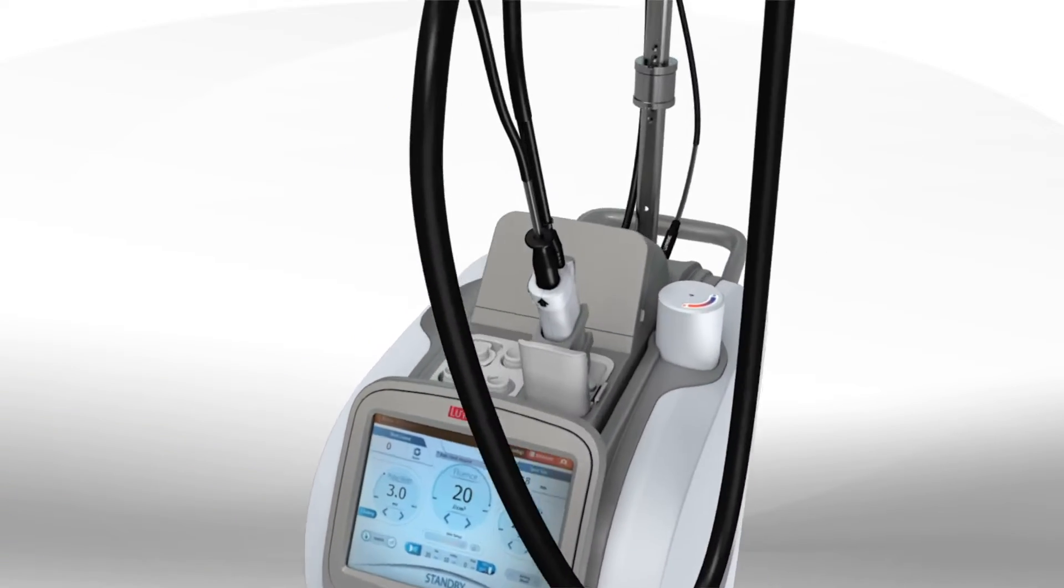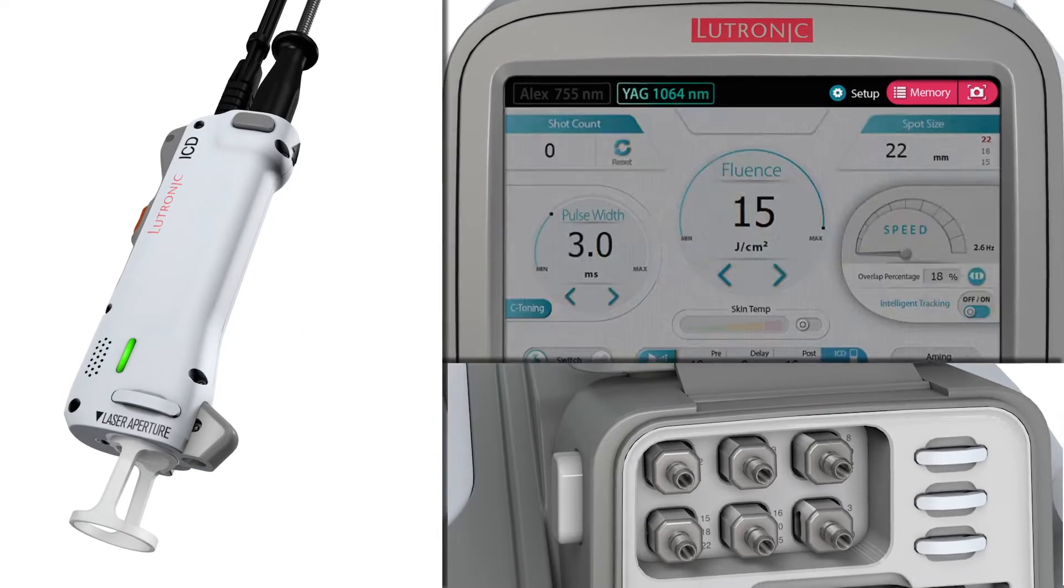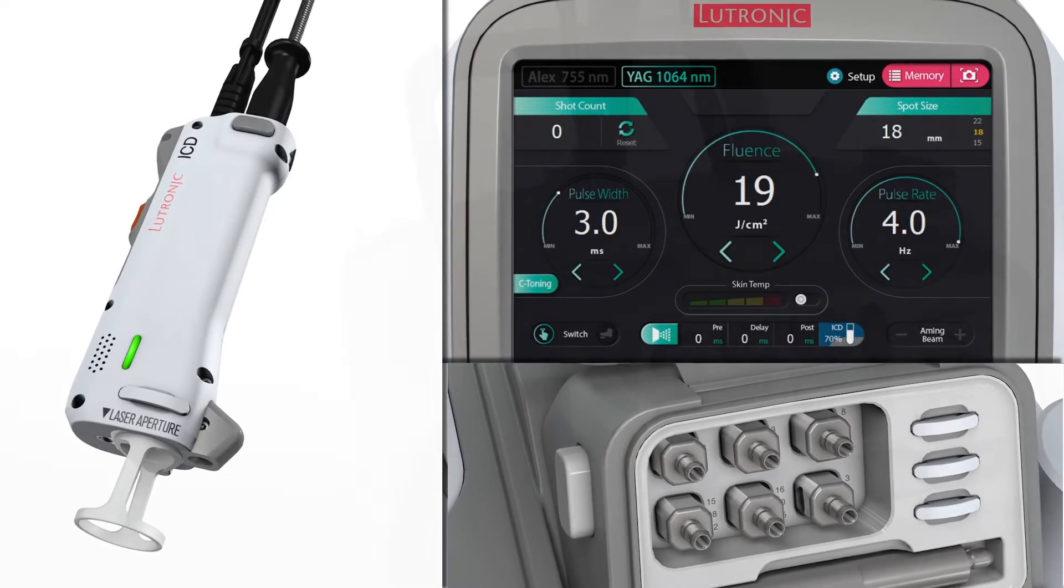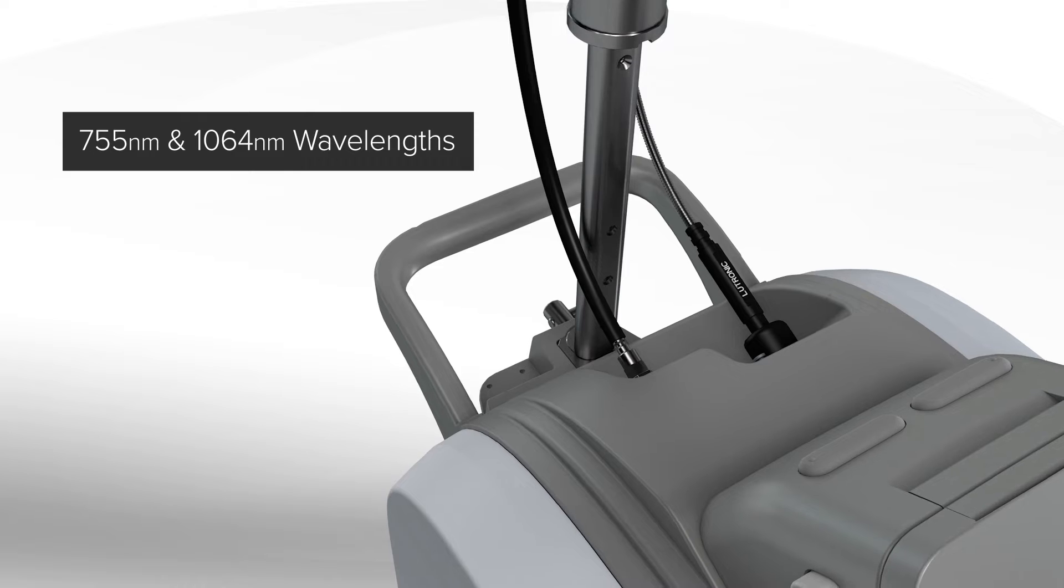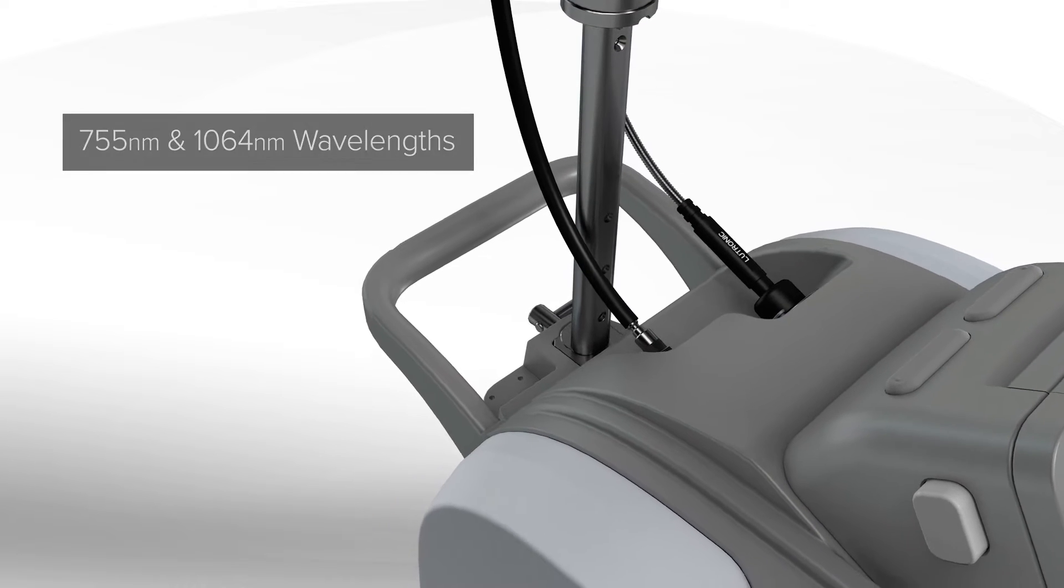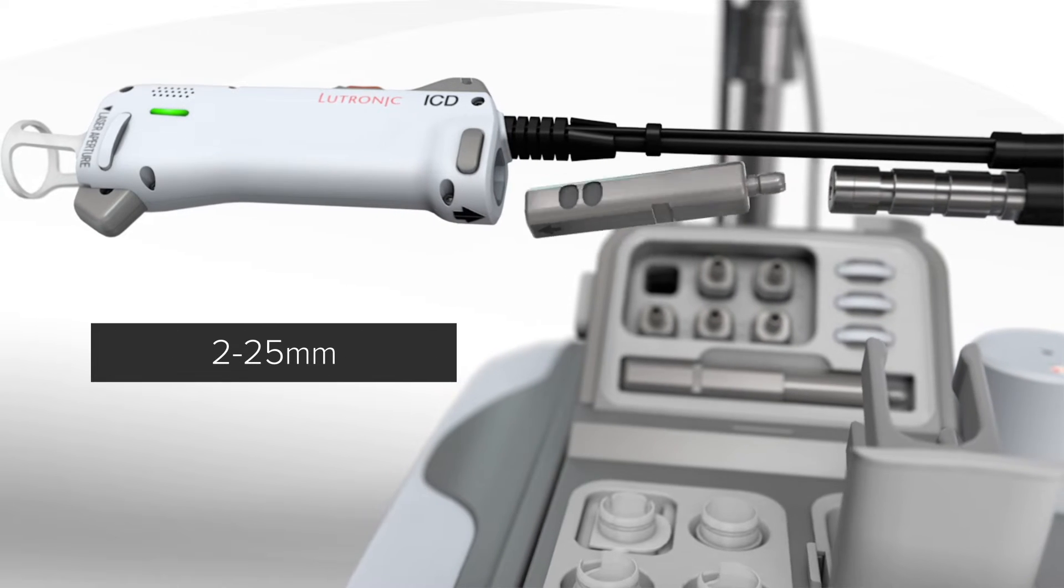No other platform provides these new capabilities. Clarity 2 integrates science and innovation into the art of delivering effective aesthetic treatments. Clarity 2's dual-wavelength single-fiber platform operates at up to 100 joules, with easy-to-change multi-spot cartridges ranging from 2 to 25 millimeters.